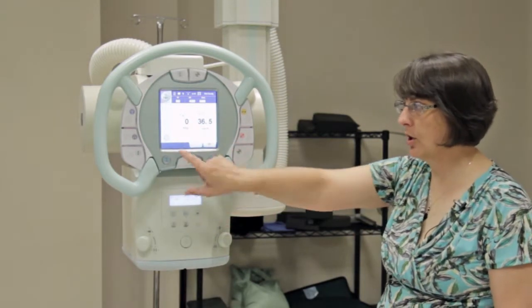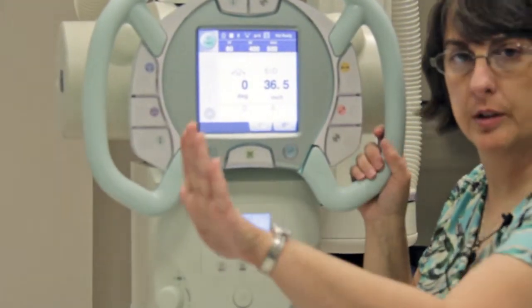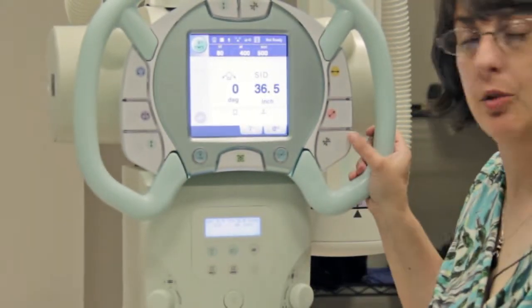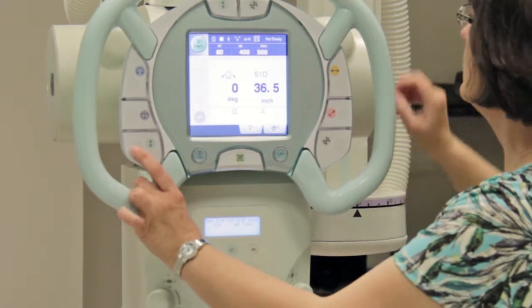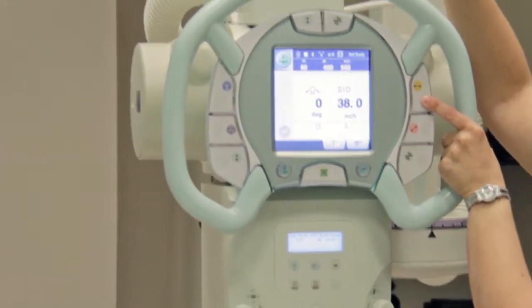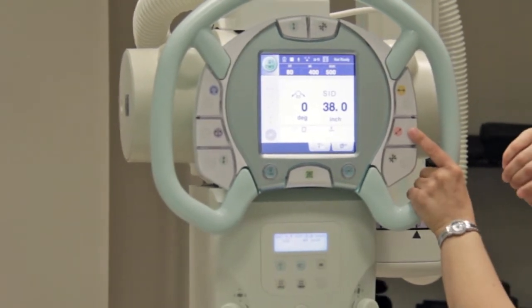On the screen you'll notice the detente — this is on, this is off. If you're going to move from one workspace to another, it's a good idea to keep those turned off so you don't run into the locks and jam up. They lock in pretty hard so you know you're there. The buttons are also color-coded: the pale green one goes with the vertical, the yellow will go with the longitudinal, and the pink will go with the transverse. You'll see those colors up at the top; there are also markings for your detente in addition to the locks.